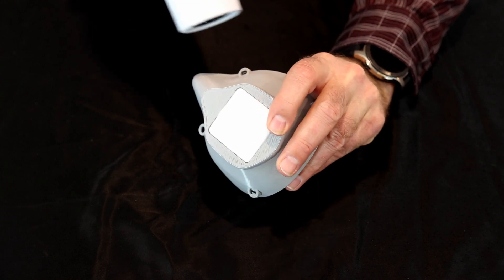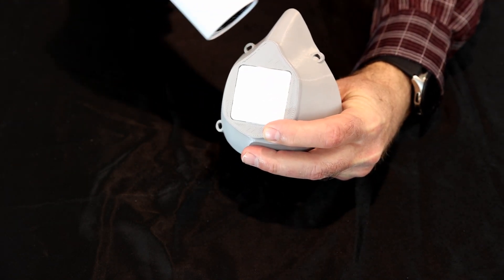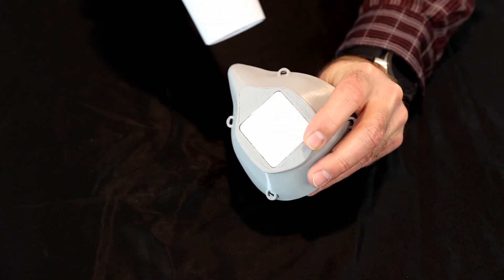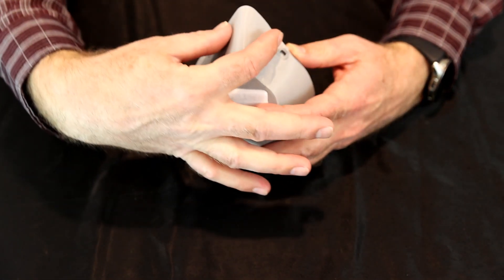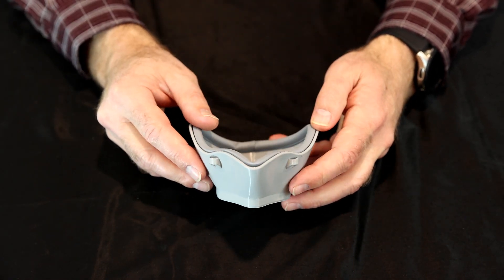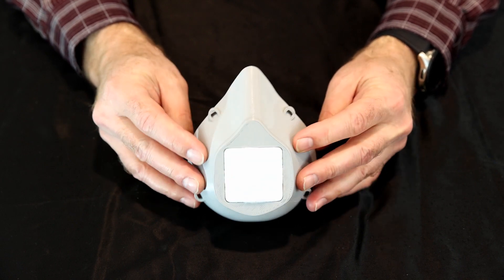Usually the fit is by the nose. On hot, you can start to see it's being a little softer. So as you push those in, you can tighten up that area in the nose, which is usually the fit that needs to be adjusted. And then this really can be customized to each individual's face.